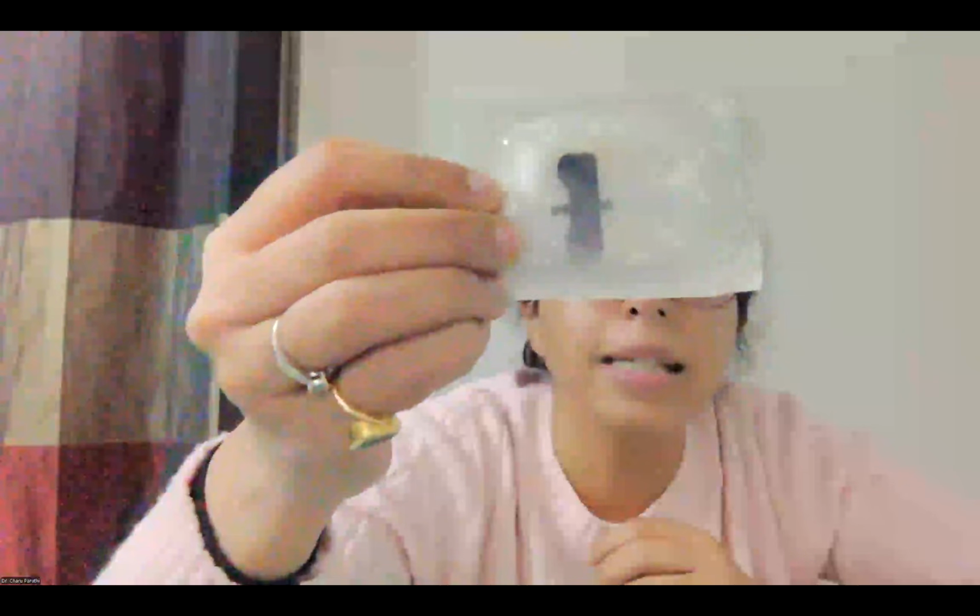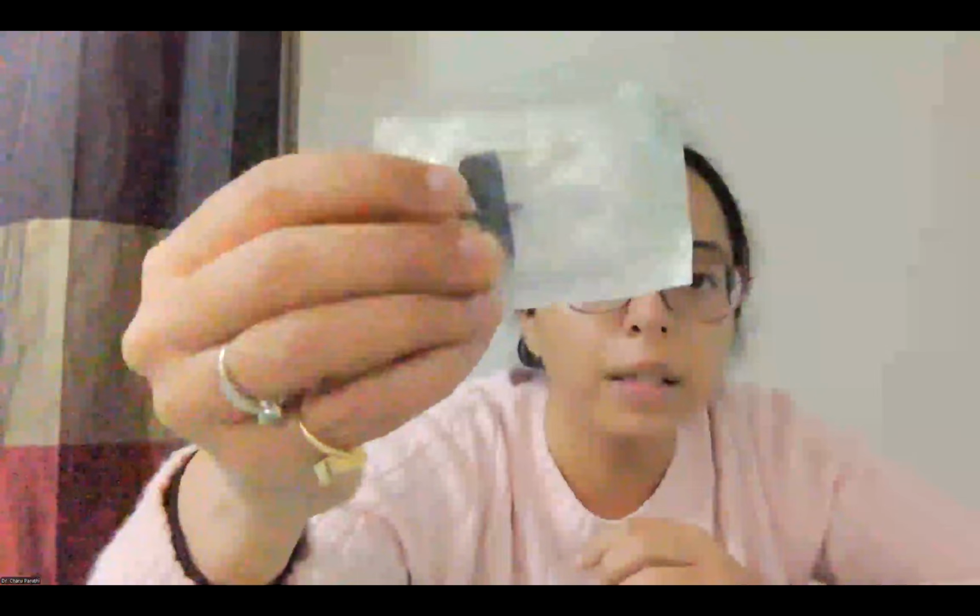Then this is something known as a scalp vein or a butterfly cannula. This is used in sclerotherapies. It has a small needle and a plastic tubing attached to it, and through this the sclerosant is injected.